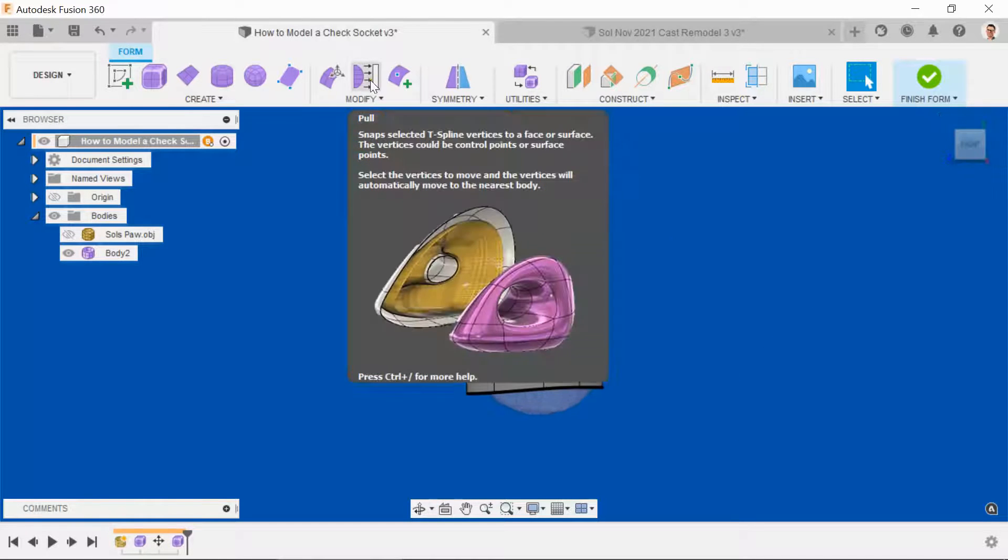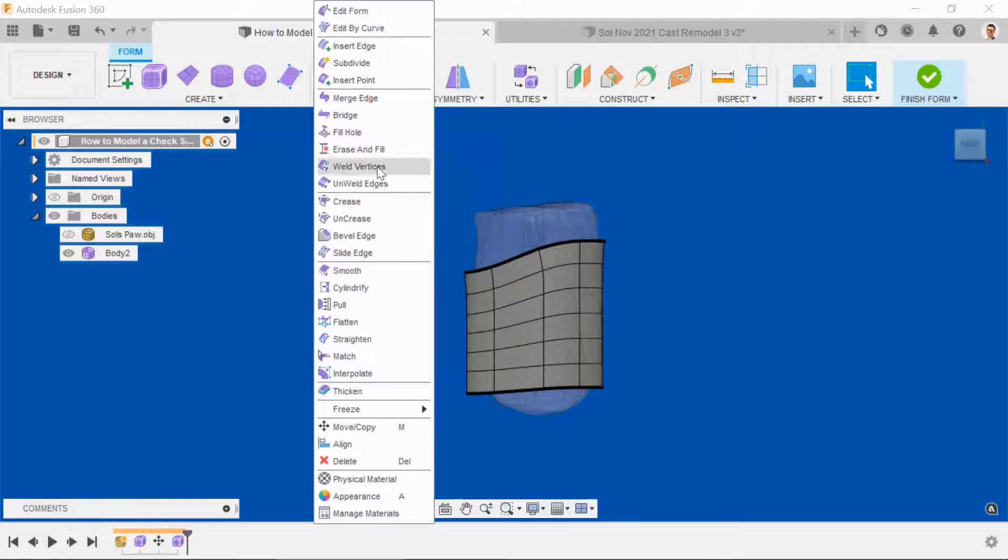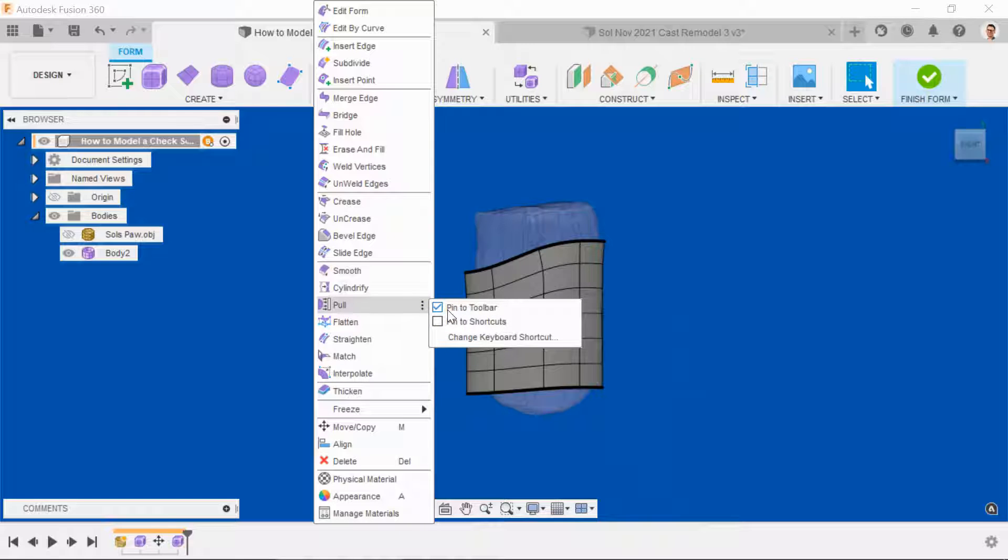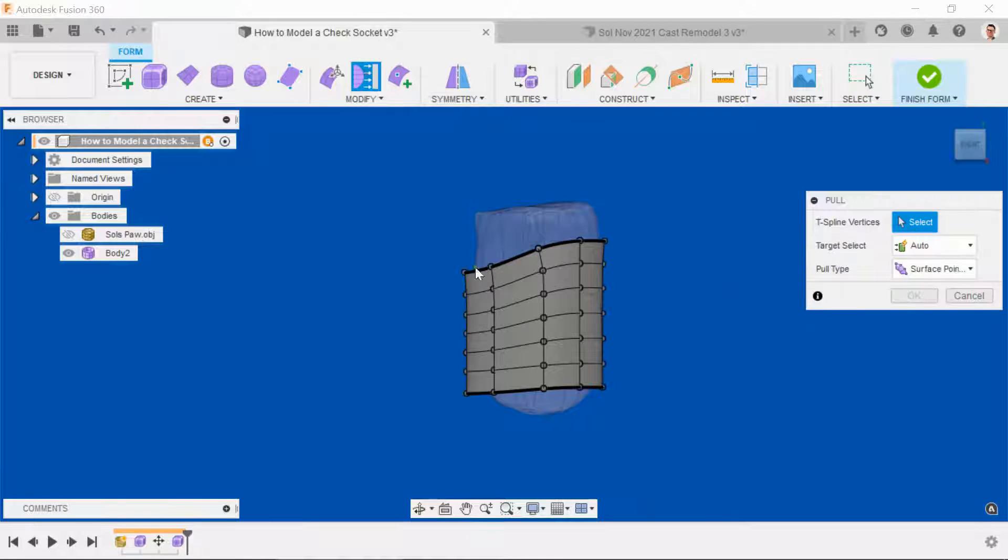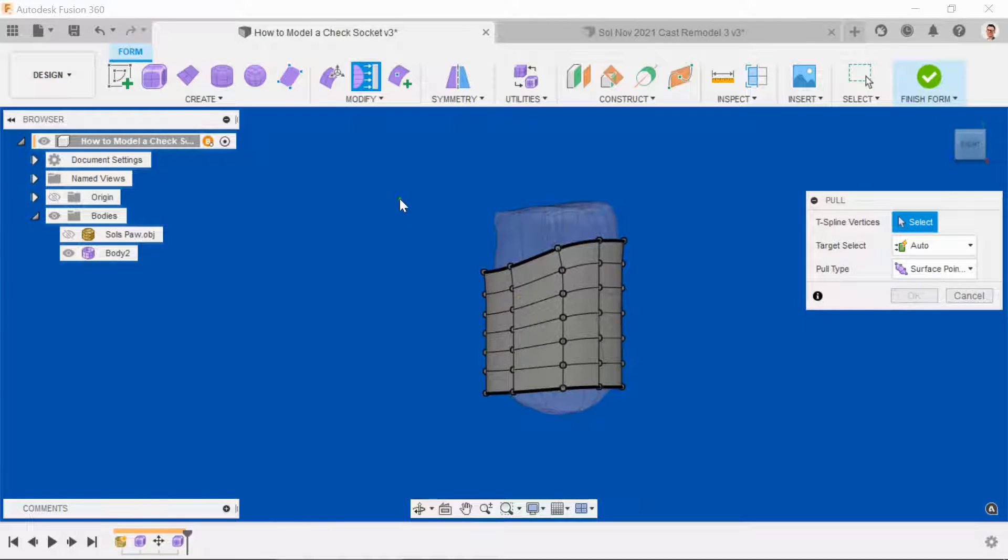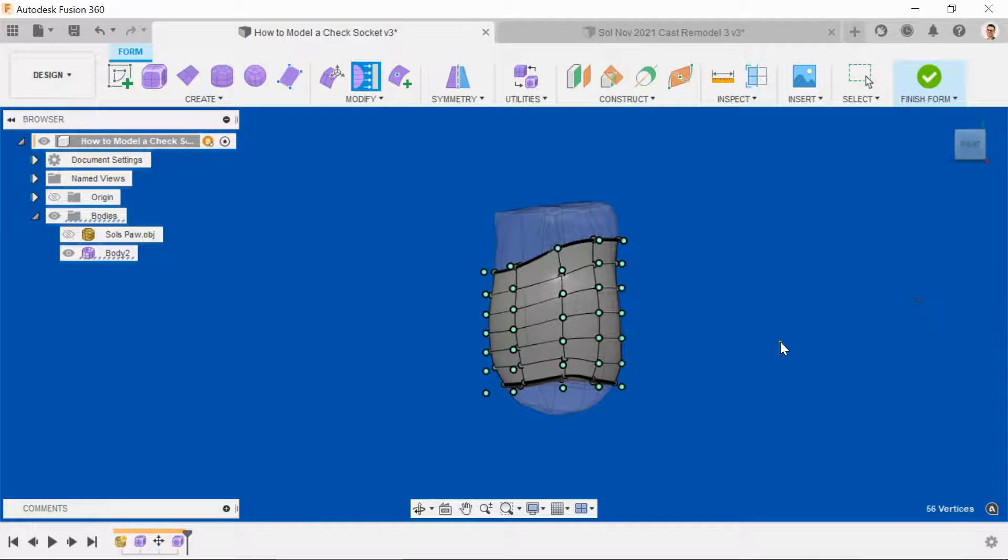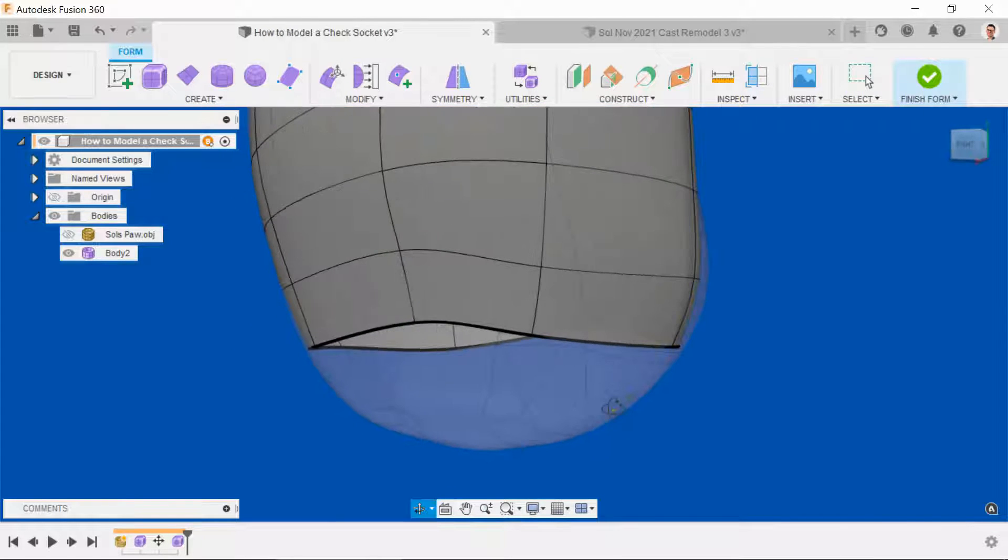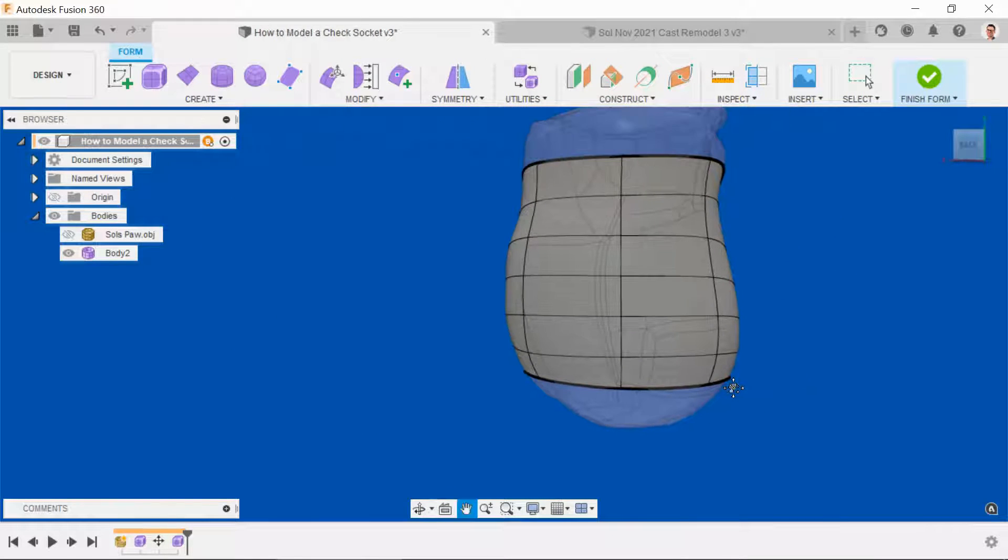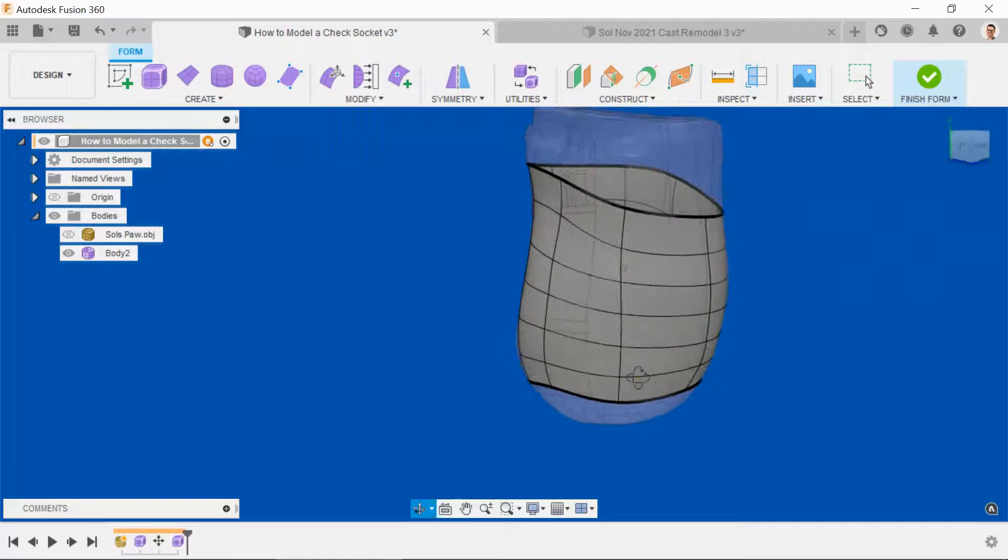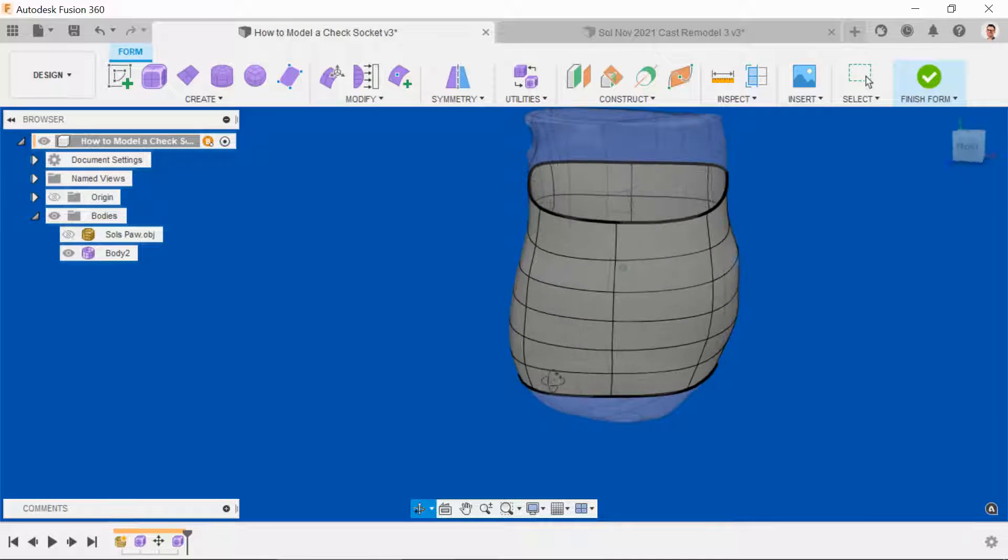So we select pull from the shortcut menu—you can access it from the full menu and on the right-hand side there's a tab there where you can pin it to the toolbar. Since you're going to be using it a lot, it makes sense to pin it back up in the toolbar. Hit the pull command and these pull points suddenly emerge. So we just create a window using the left mouse button, cover the entire area, and hit OK. And that's pulled quite nicely. It's given us a nice defined upper socket.